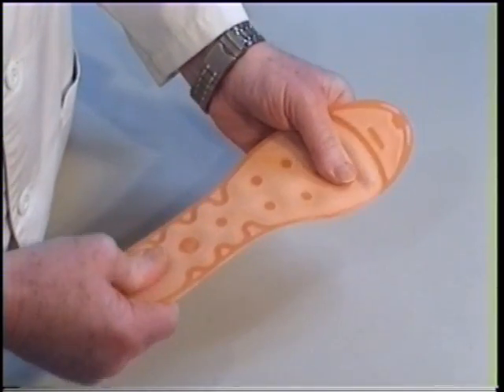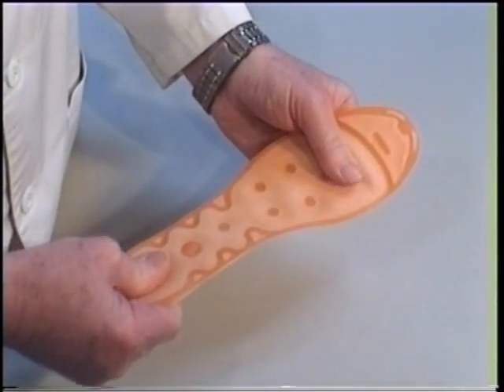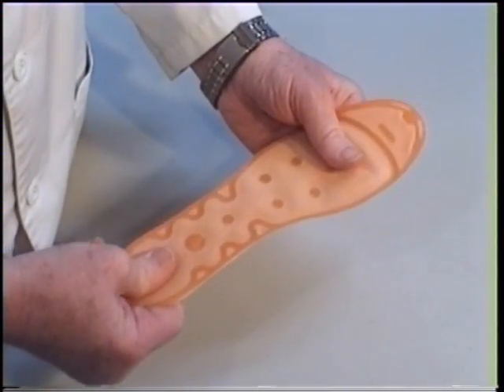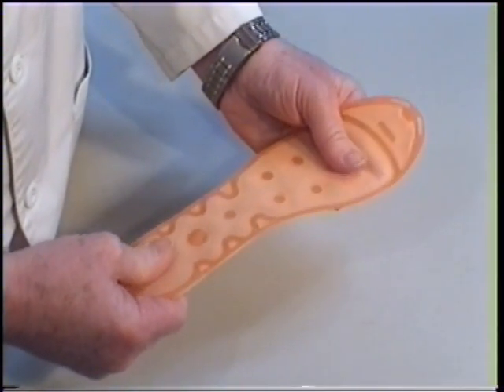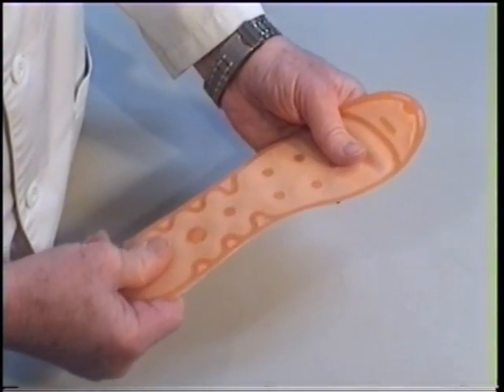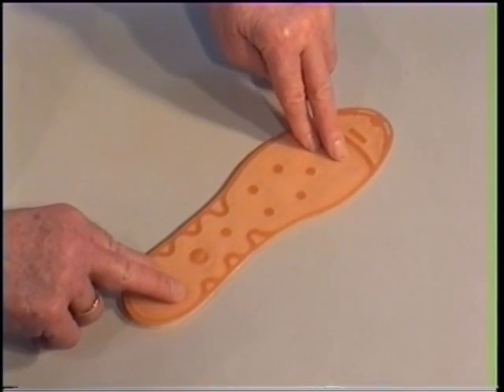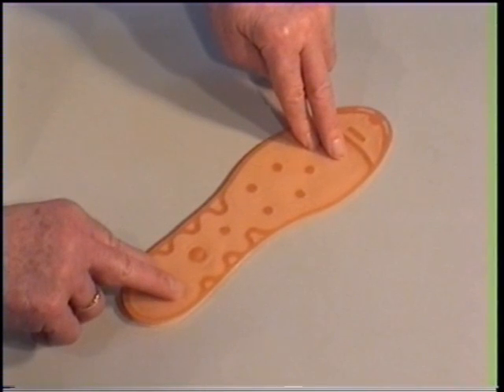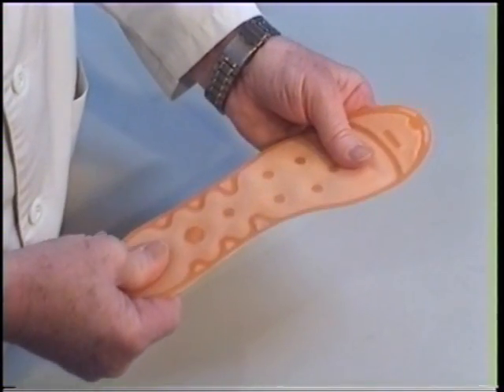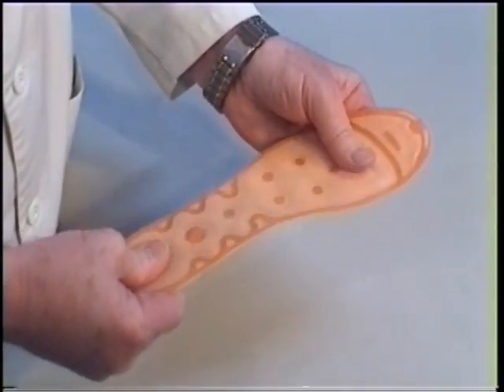There is water in the sensory massage sole. This is necessary if we want to achieve the desired flexibility in the foot's lengthwise tendons. Water is the only liquid flowing fast enough to achieve a continuous provocation of the movement of the foot every time there is just a small change in the position of the body's center of gravity. The water's reaction is fast enough to provoke a new movement of the foot, even with the smallest change of the load. The water in the soles is therefore creating an ongoing provocation for the foot's lengthwise tendon to move, even with the total body weight resting on the foot.